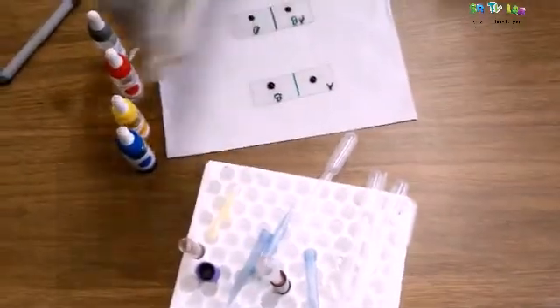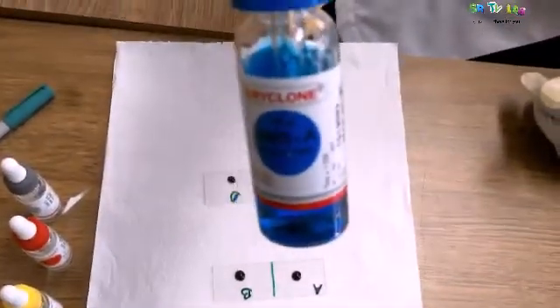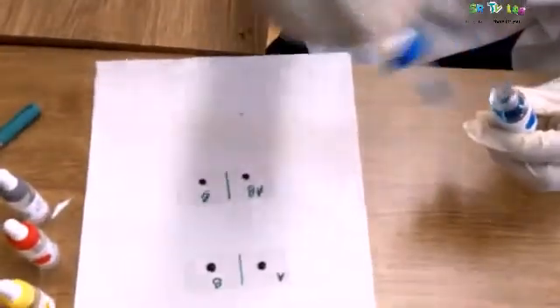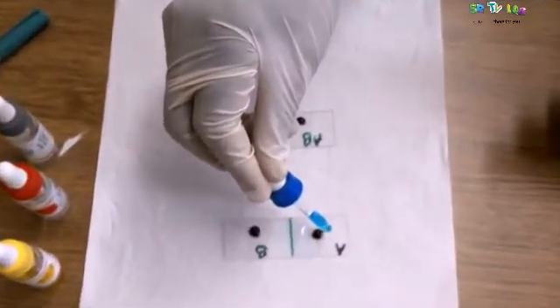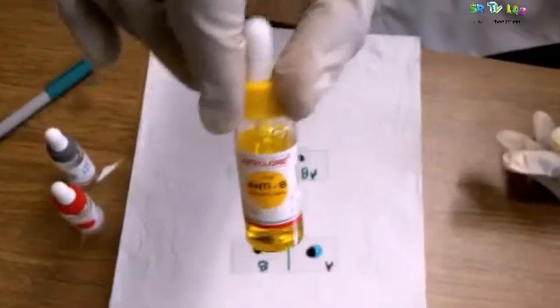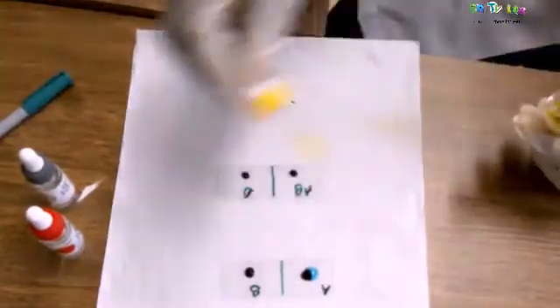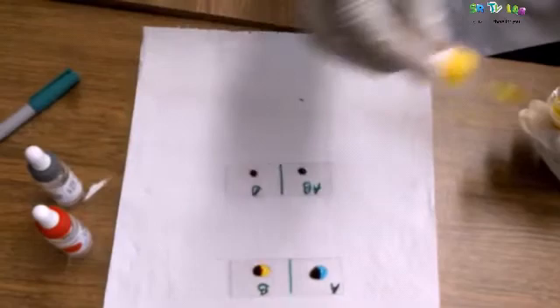Let's start with the antibody anti-A. If this person has blood group A, there will be agglutination at A. But remember, AB also contains A. There will also be agglutination at AB. Next is B. If there will be agglutination at B, because this is the antibody anti-B, that person will have group B.